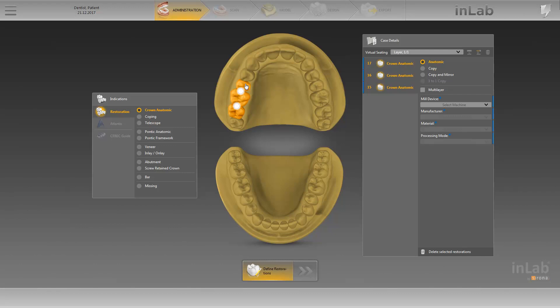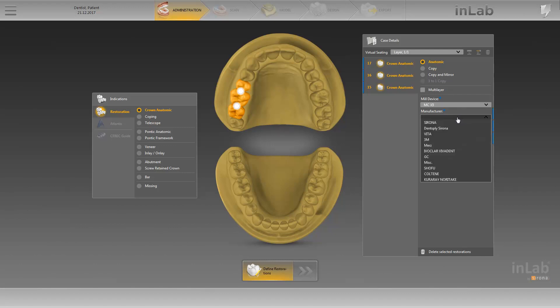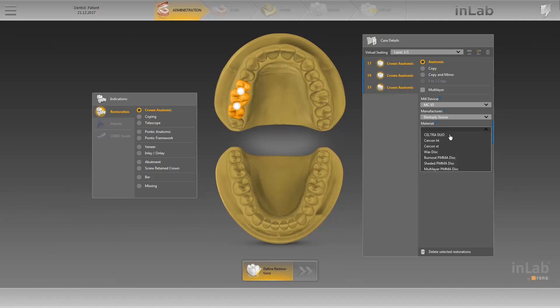The white circles between the restorations at 1-5 and 1-6, as well as 1-6 and 1-7, show that no connector has been defined yet. By grouping the restorations, we can define in the case details the information regarding the mill device, manufacturer, and material for the whole group. Mandatory fields are marked with a blue asterisk, as well as a blue indicator on the right-hand edge of the case details window. As soon as all the mandatory fields have been selected, the blue indicator to the right disappears.